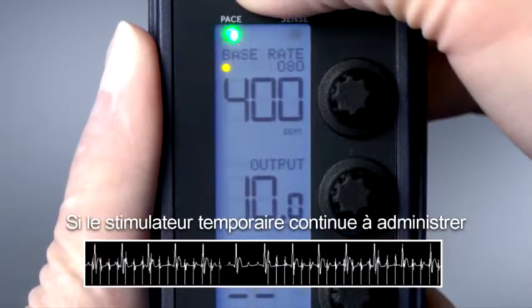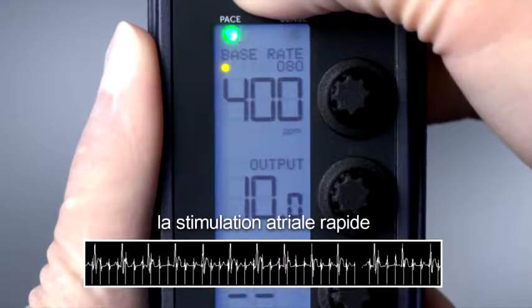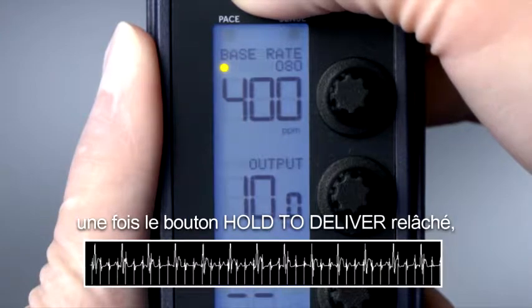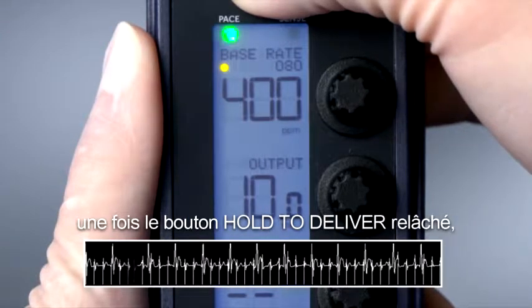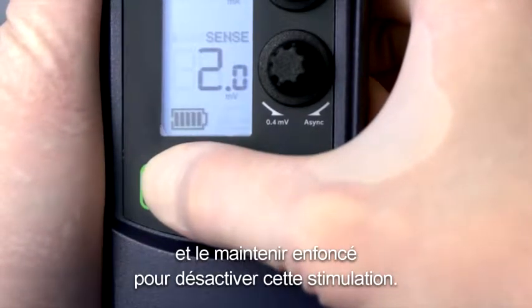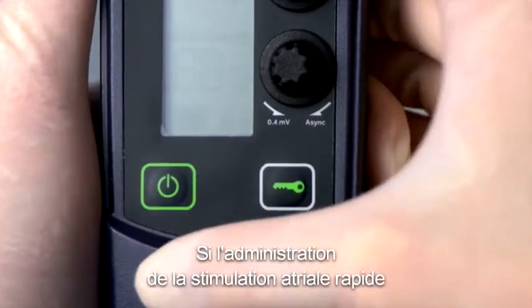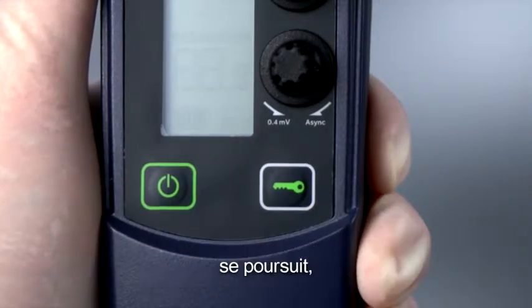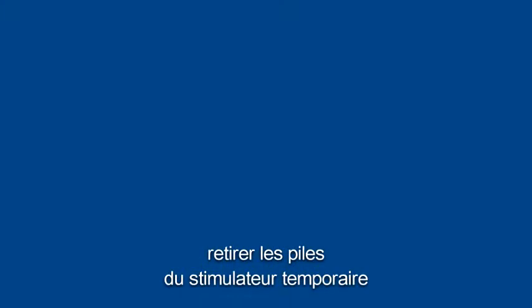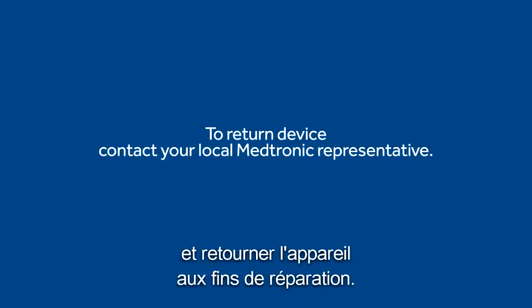If the temporary pacemaker continues to deliver rapid atrial pacing after the HOLD to DELIVER button is released, press and hold the ON-OFF button to stop rapid atrial pacing. If rapid atrial pacing continues to be delivered, remove the batteries from the temporary pacemaker and return the temporary pacemaker for service.